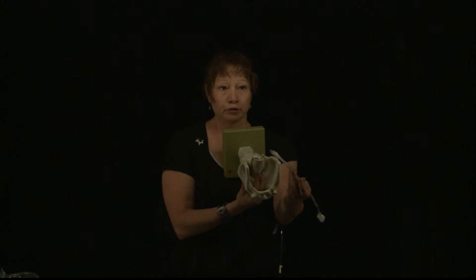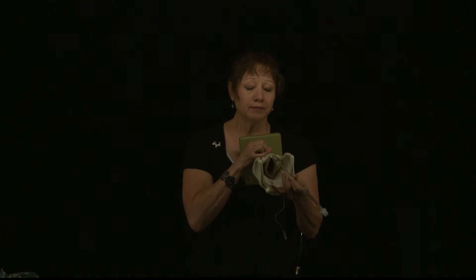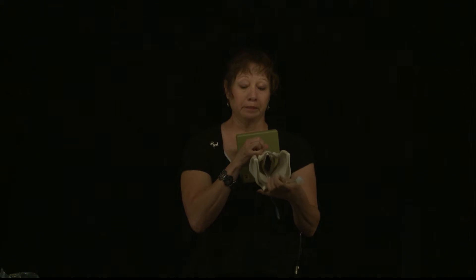I'm going to take a look at the laryngeal model again to show you how normally, when you look into a lightly anesthetized animal, this is what you're going to see. You're going to see the epiglottis folded over the opening of the trachea. You can take the endotracheal tube and, as you're passing it, advance it into the trachea — using the tube to pull the epiglottis out of the way and then pass your tube into the trachea. Sometimes that's not very easy, and depending on the animal and the breed, we would need to use what's called a laryngoscope.